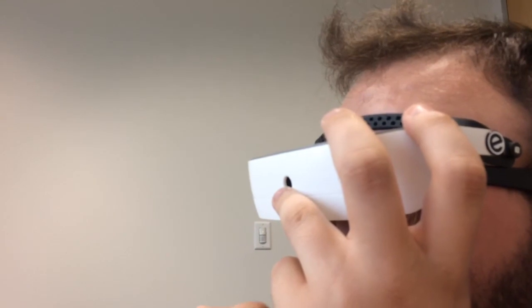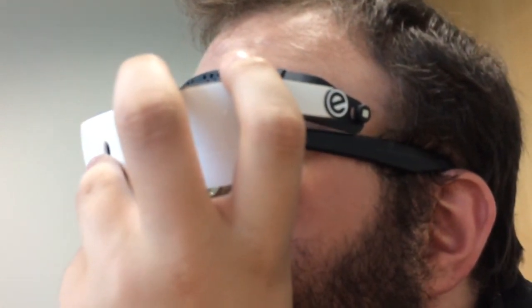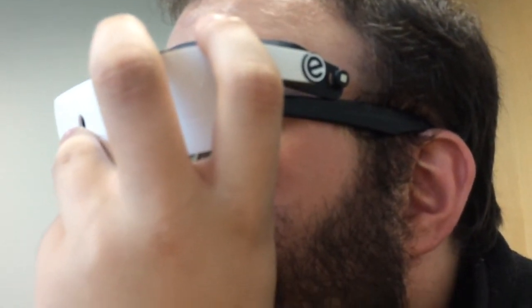The user clarifies he wasn't thinking of light and darkness contrast, but rather color modes. The demonstrator shows what the color mode looks like, backing the zoom out first. She notes it won't look the prettiest on video, but works amazingly for reading and anything close up — between 12 and 18 inches. She mentions that younger kids find it amusing when they change the colors and see their parents in yellow and black or 'Walmart vision' yellows and blues. The color modes work best for tasks like reading.